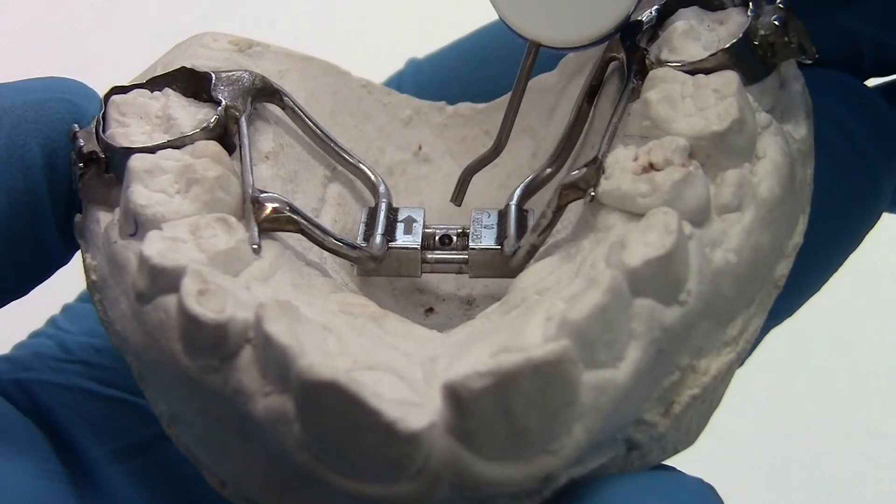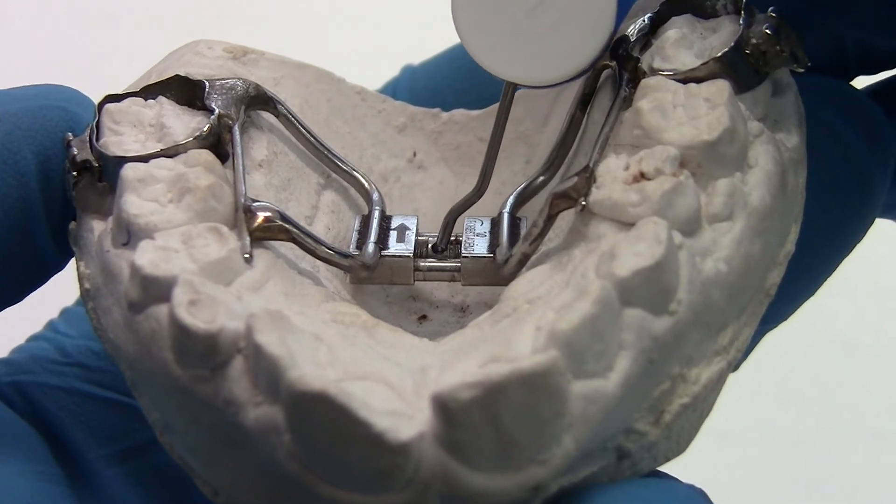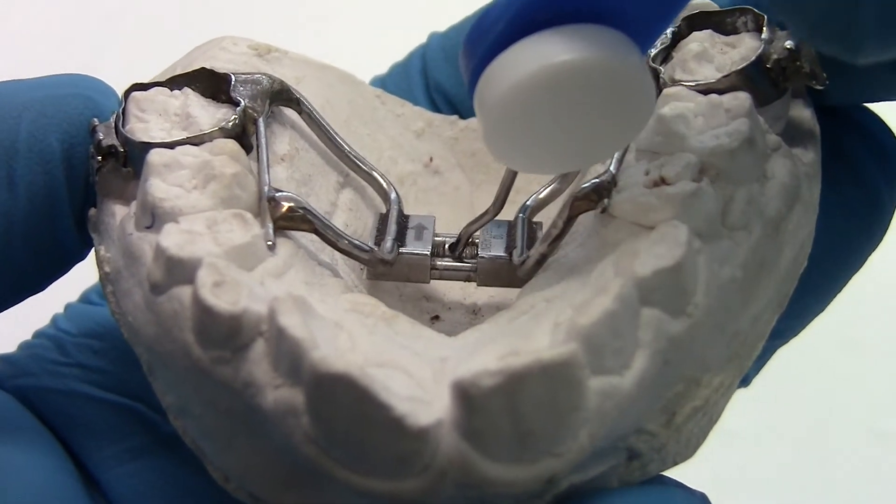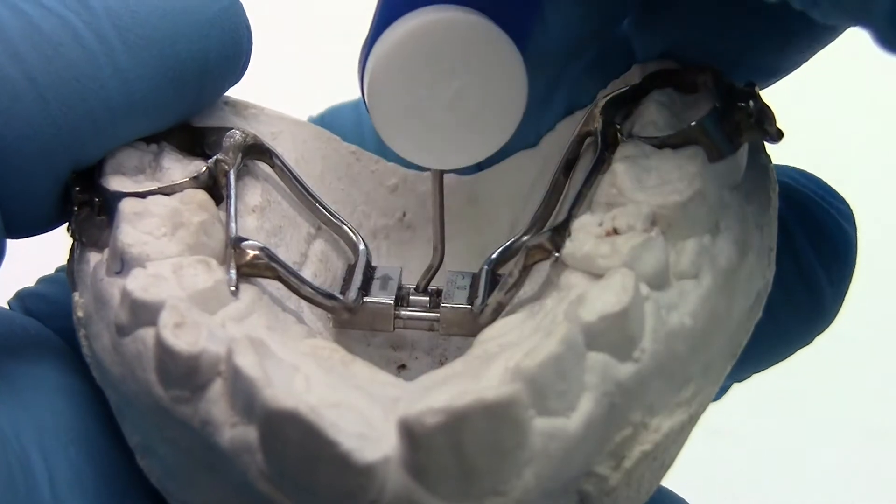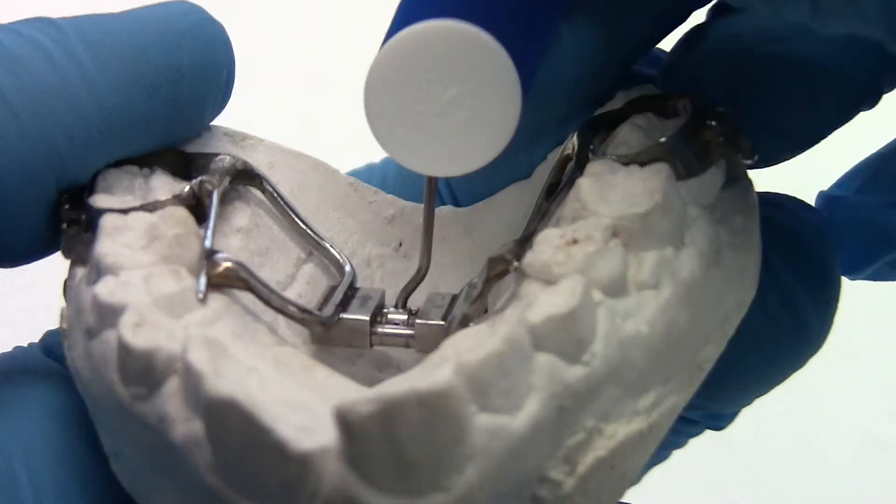After doing a full turn, you should be able to see a hole for your next turn. If you lose or can't see the hole, it's most likely because you didn't do a full turn.